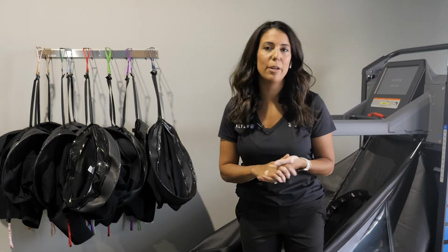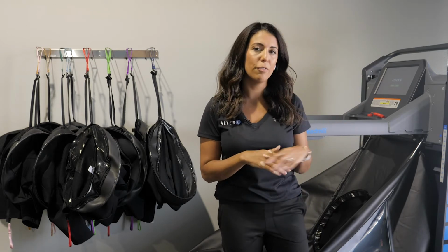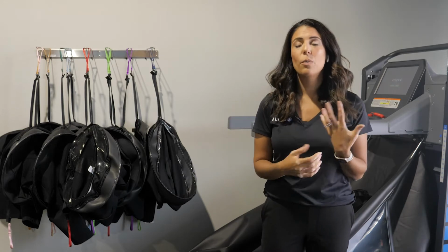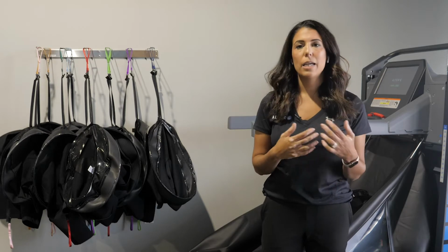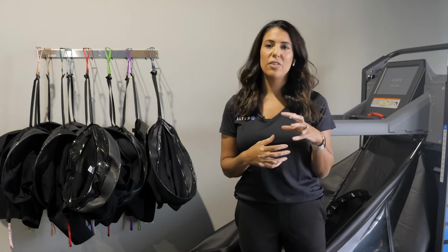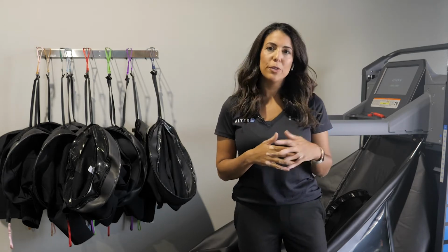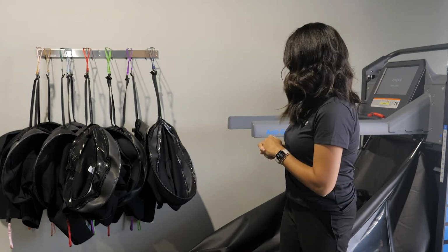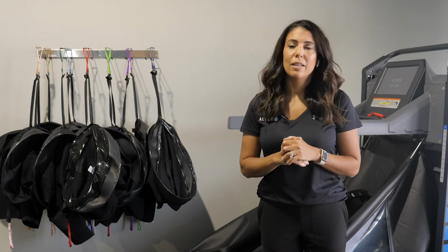We also have a Fit and a Pro model. The differences with the models, the Fit and the VIA, the frame is the same. The biggest difference are the capabilities in software, whether or not you have gait analysis software, reverse function, incline, speed. We have the ability to alter those, so it can really fit the needs of your clinic and your patient population. Some other features we'll go over: the ability to have some live video monitoring capabilities, and like we said, the gait analysis software. So we'll try to go over all those pieces today.